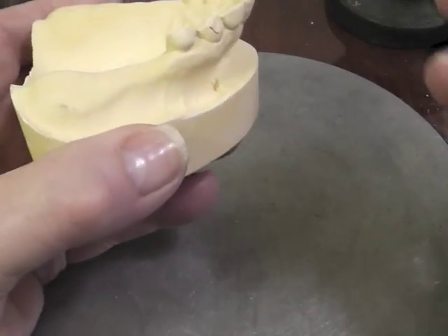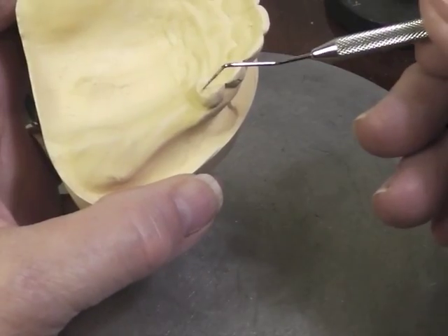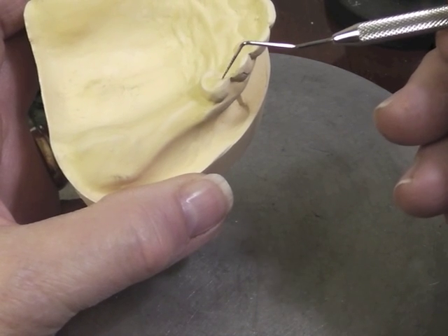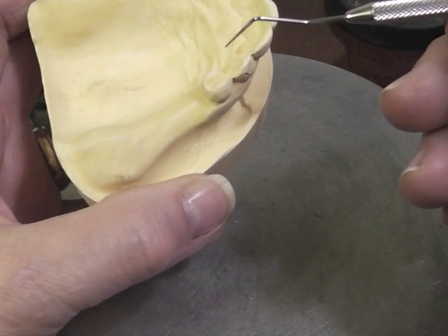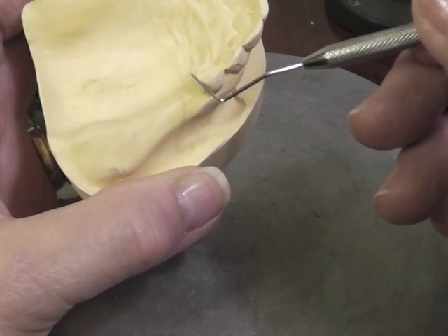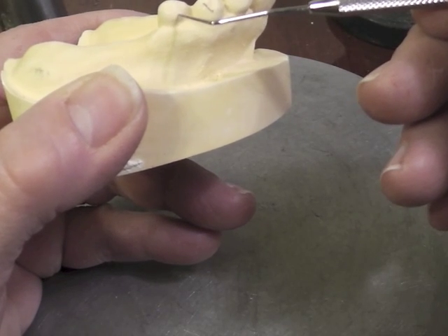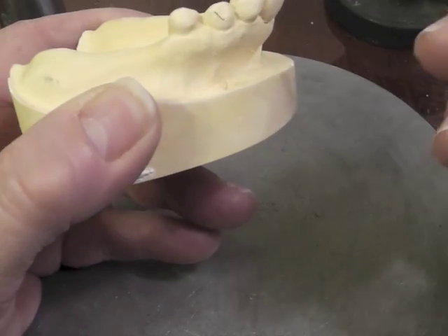On the other tooth, our ideal clasp of choice is the I-bar with a mesial rest. It has to have these components: mesial rest, distal guide plate, cast I-bar to the mid-facial .01 undercut.